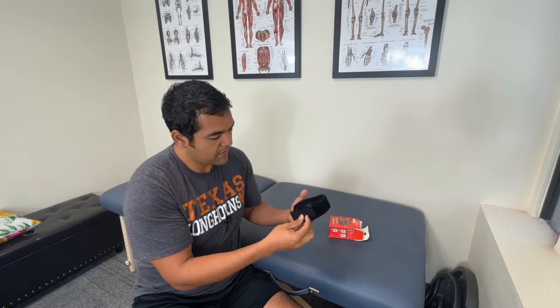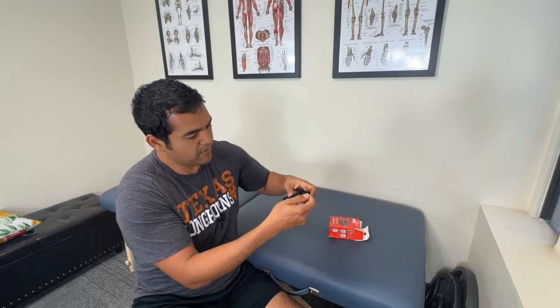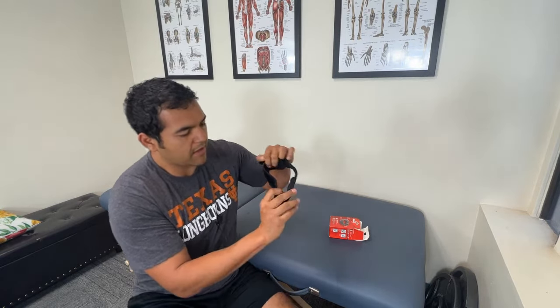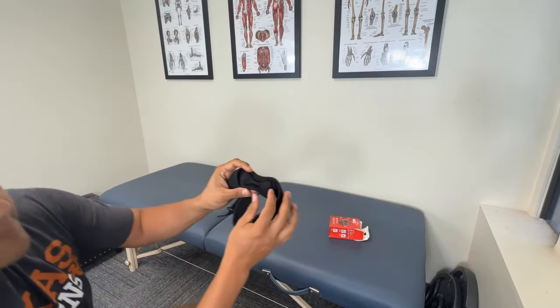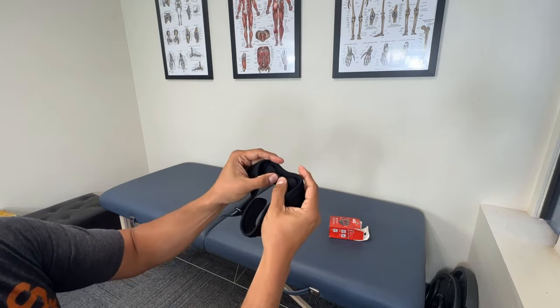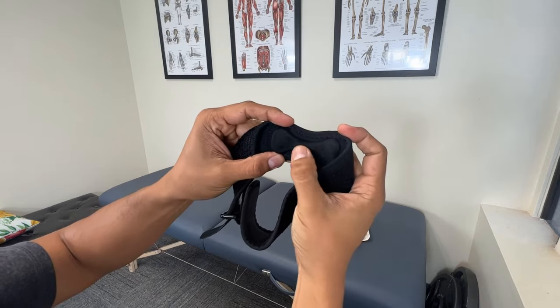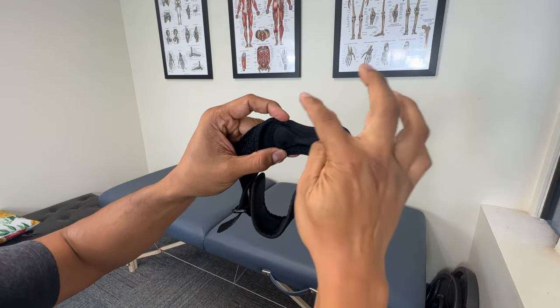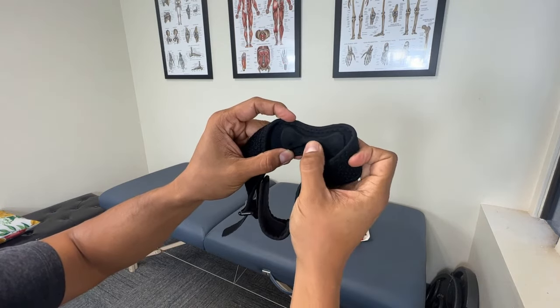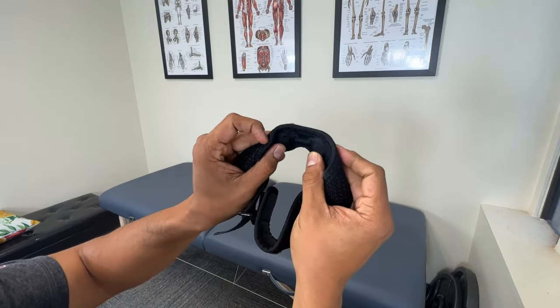There is a special part that goes on the knee. It's got this Velcro — it sticks very well because it's intended to be used when you're running. On the inside, it's got this bone-shaped pad. It's firm but cushiony; it's got some give to it. You put that pad on your knee below your kneecap — your kneecap goes up above — and there's a tendon that runs down below the kneecap. That's where this puts some pressure, and it wraps around the tendon to give it some compression.